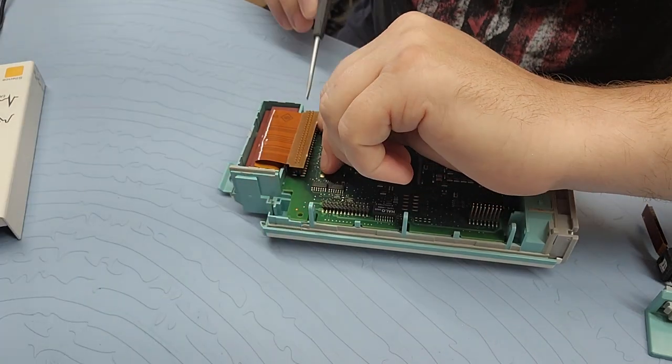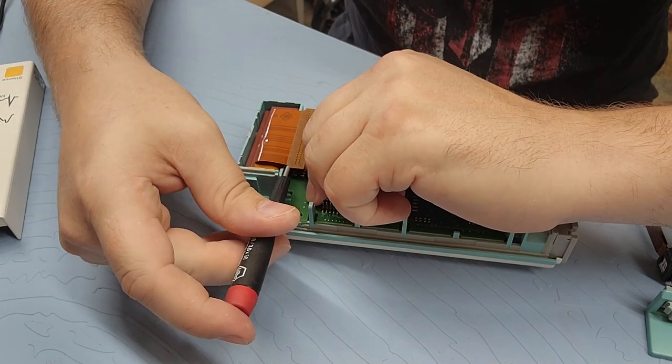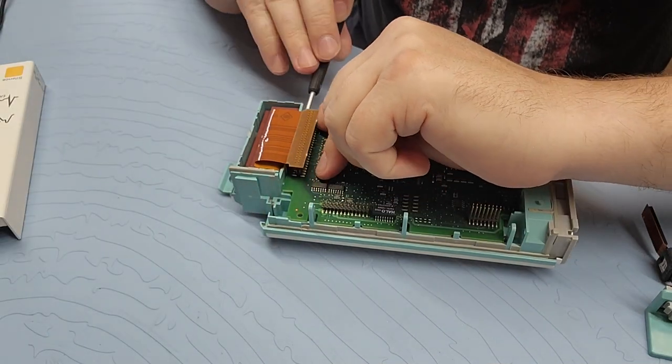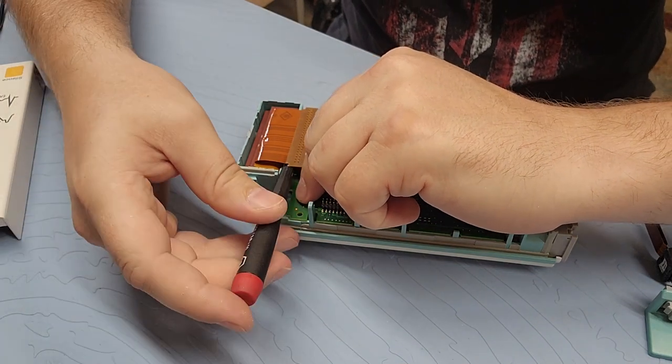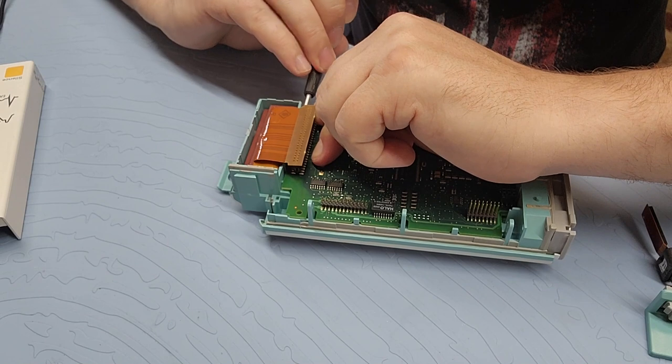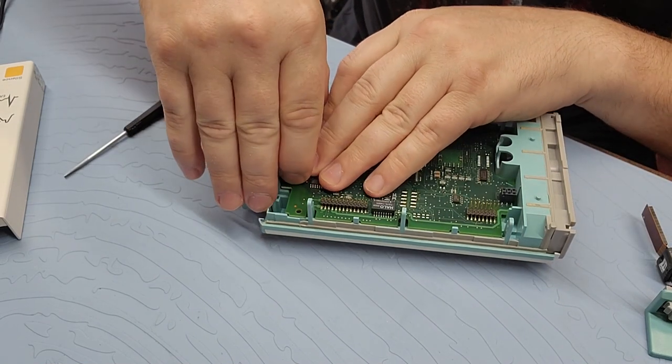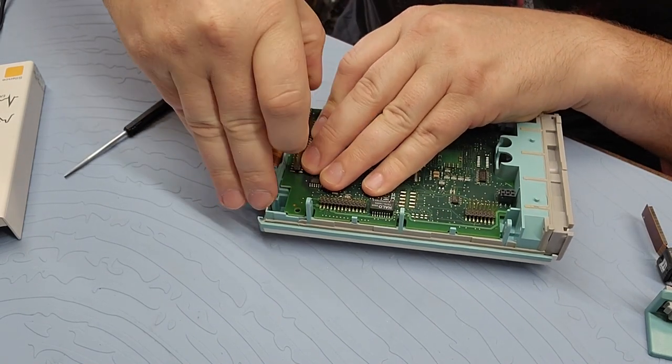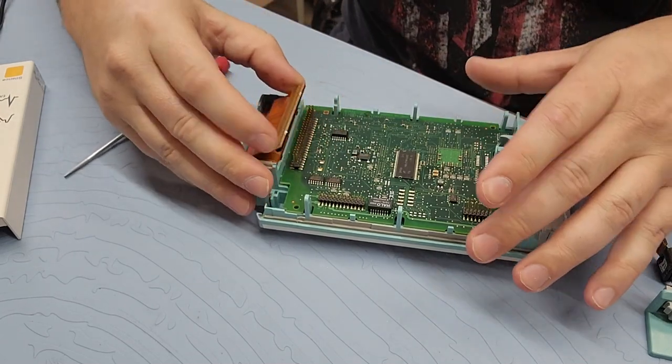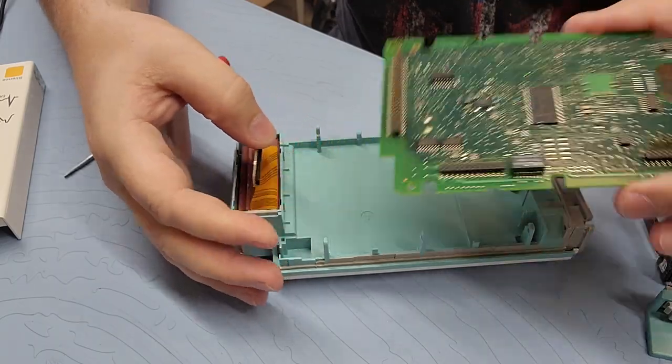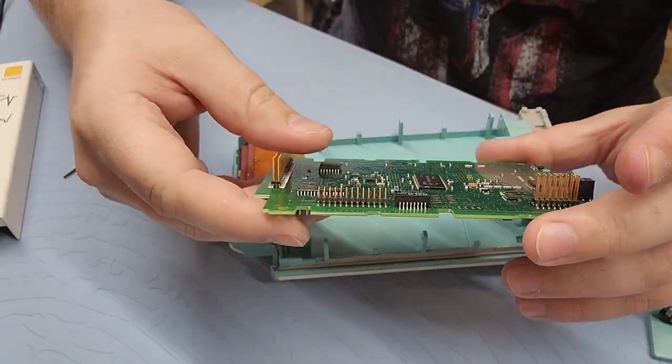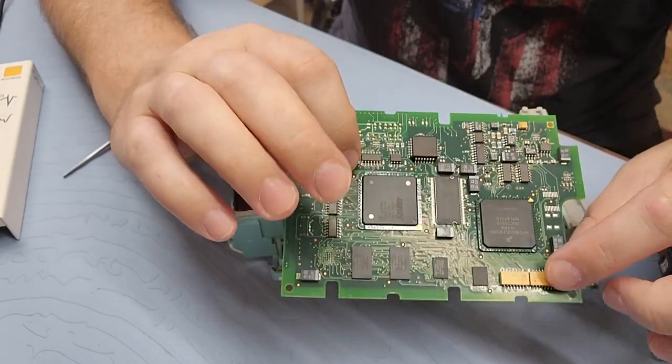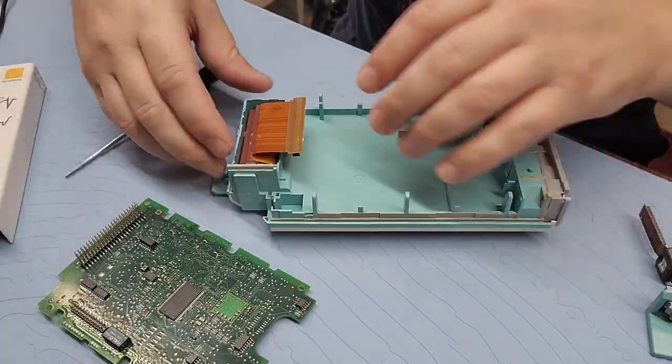There we go. So, now it's broke loose. Now I have the option to go back and very lightly guide it upwards. Notice how I'm not going all the way up. Just a couple millimeters each way. You want to keep all those pins nice and in a line. Linear. Okay. Now it's almost completely at the top. There we go. Alright. So, this is that CPU board. Pretty cool. That's where all your software is flashed to.